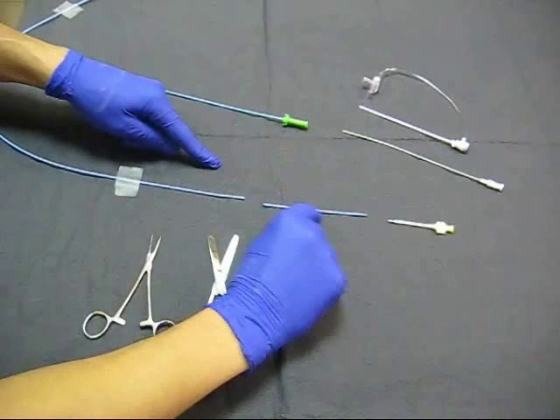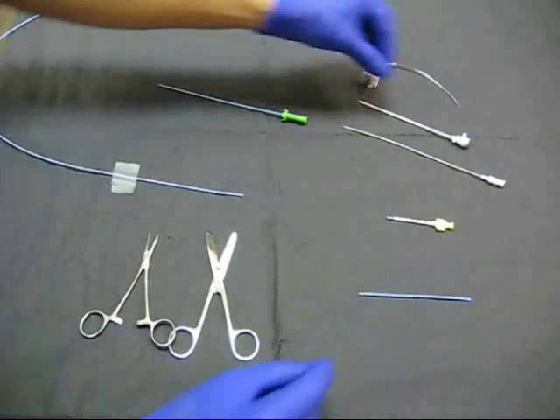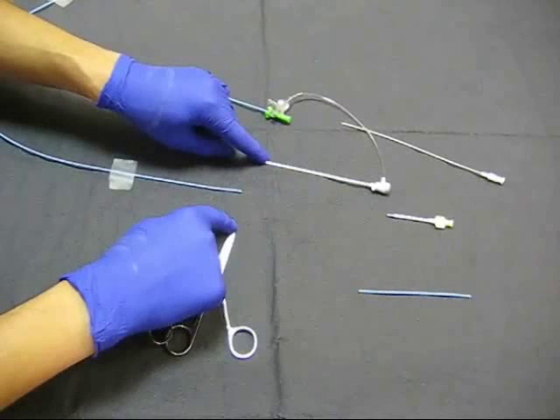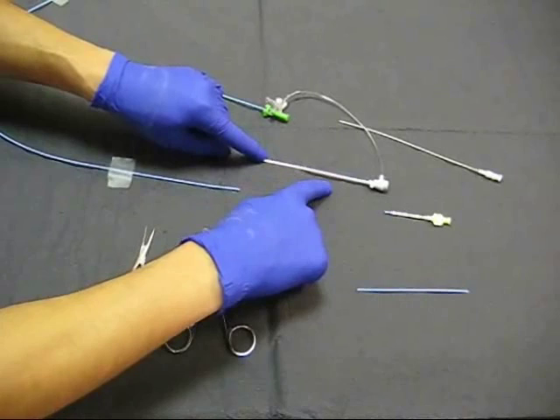Our goal is to connect the proximal part of the guiding catheter with the distal using a connecting portion that is going to come from a sheath that is one French smaller than the guiding catheter. In this case we have a six French guiding catheter and we are going to use a five French sheath as the connecting segment.